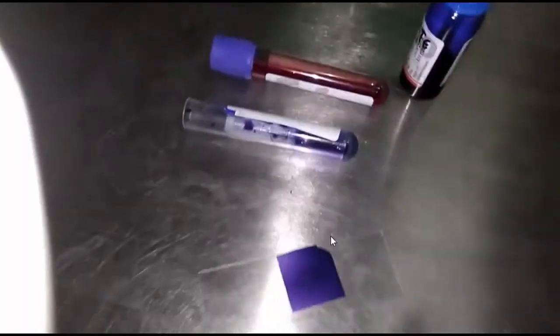From this slide we will be able to observe live microfilaria, whereas from this slide dead microfilaria will be seen.